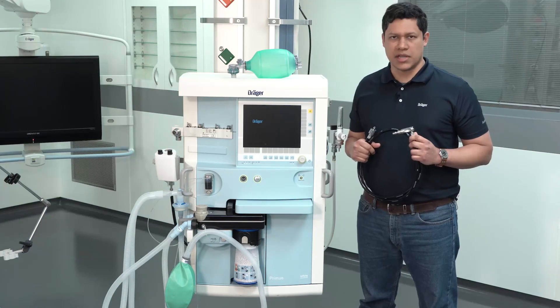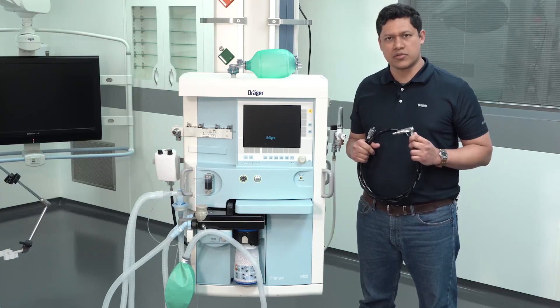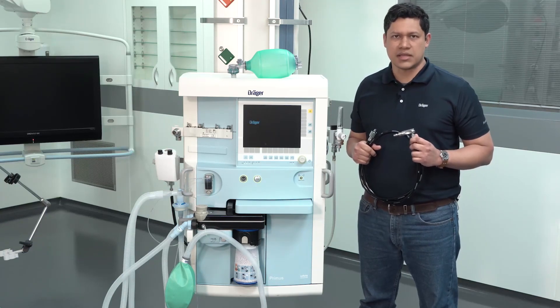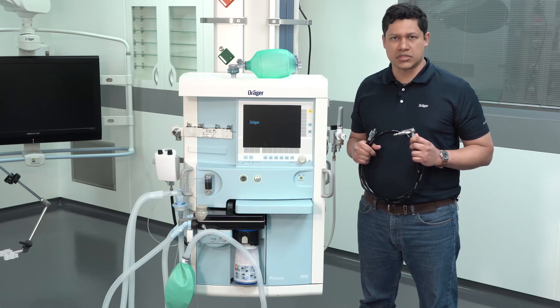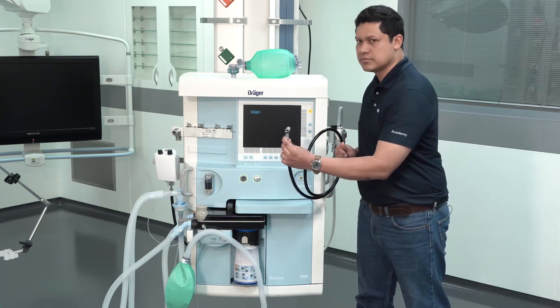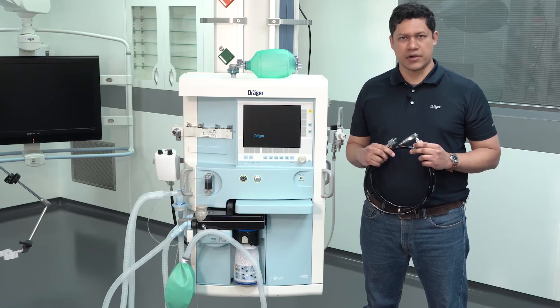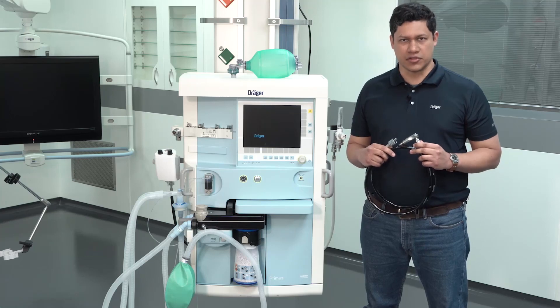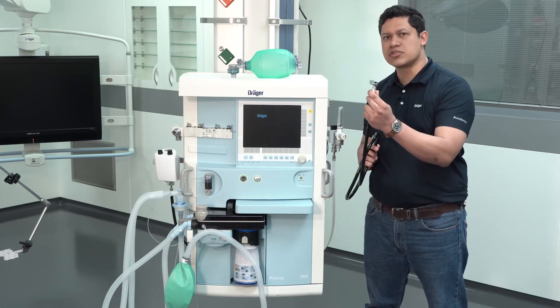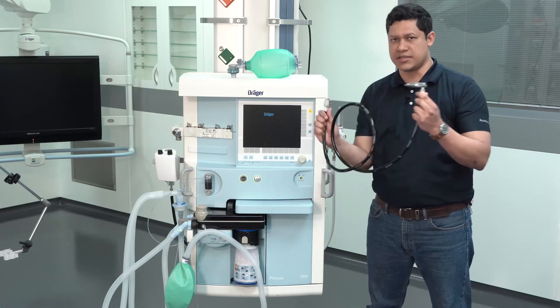Make sure nitrous oxide is not supplied to the anesthesia device. Disconnect the nitrous oxide hoses from the source. Make sure you first disconnect from the source, and then disconnect from the back of the anesthesia device.